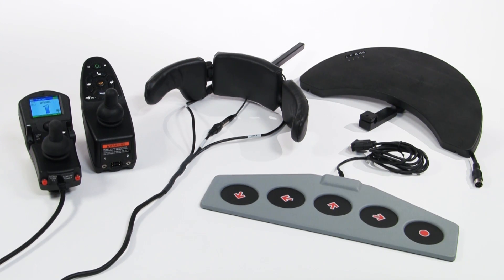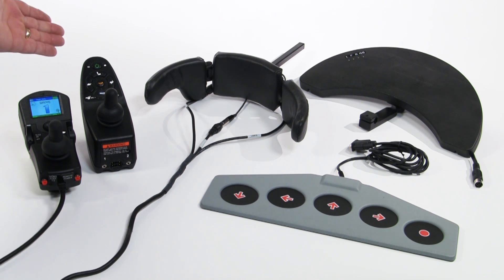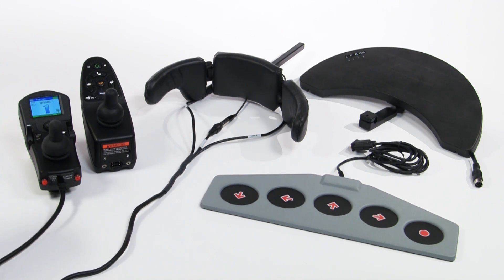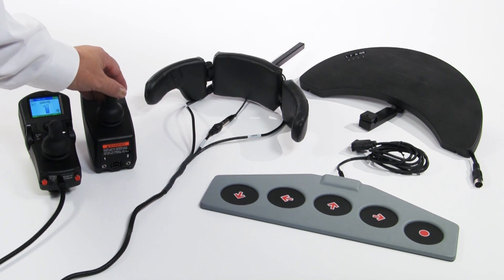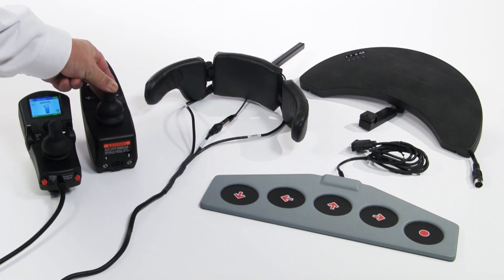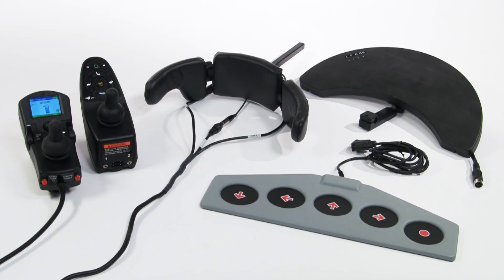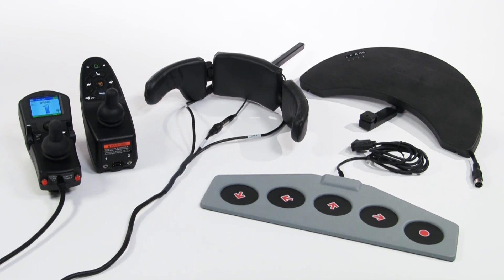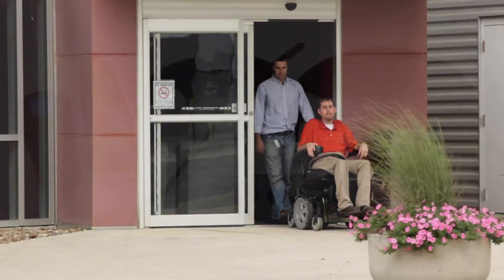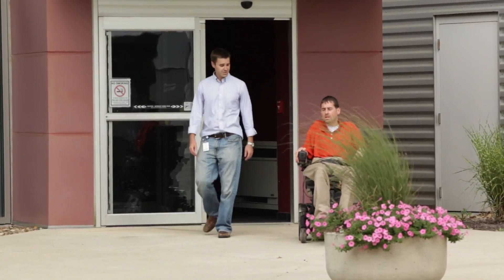A proportional driver control operates with similarities to the gas pedal of a car — the farther you push or move something, the faster the wheelchair will go. A traditional joystick on a power wheelchair is a great example of a proportional control.